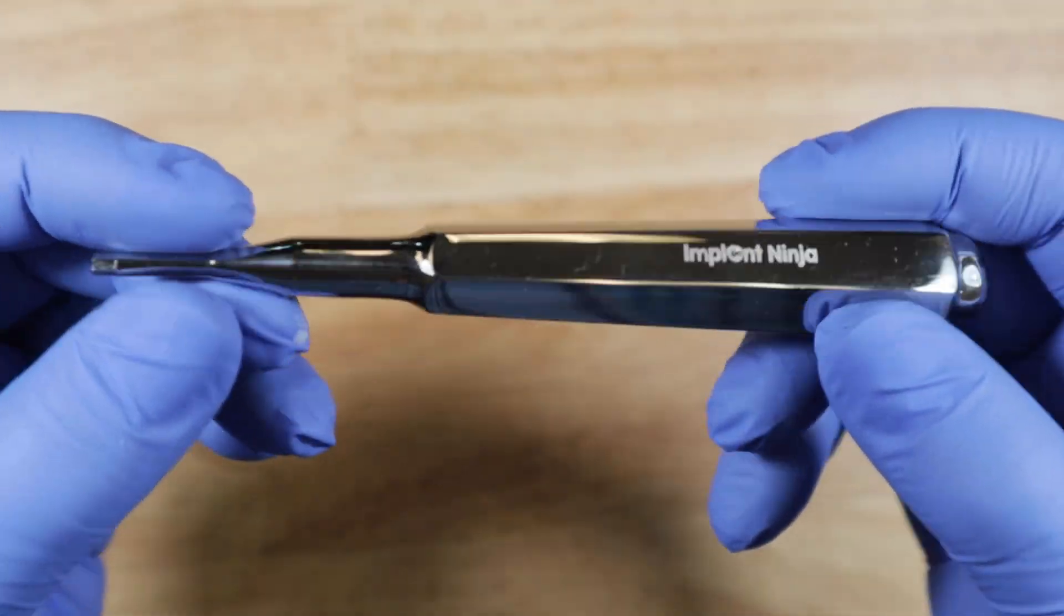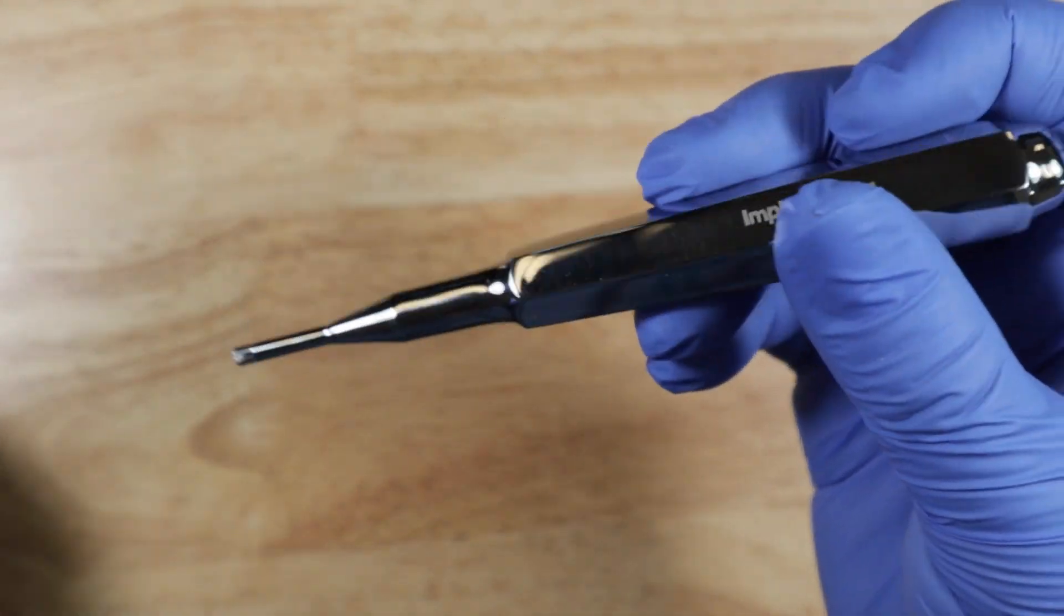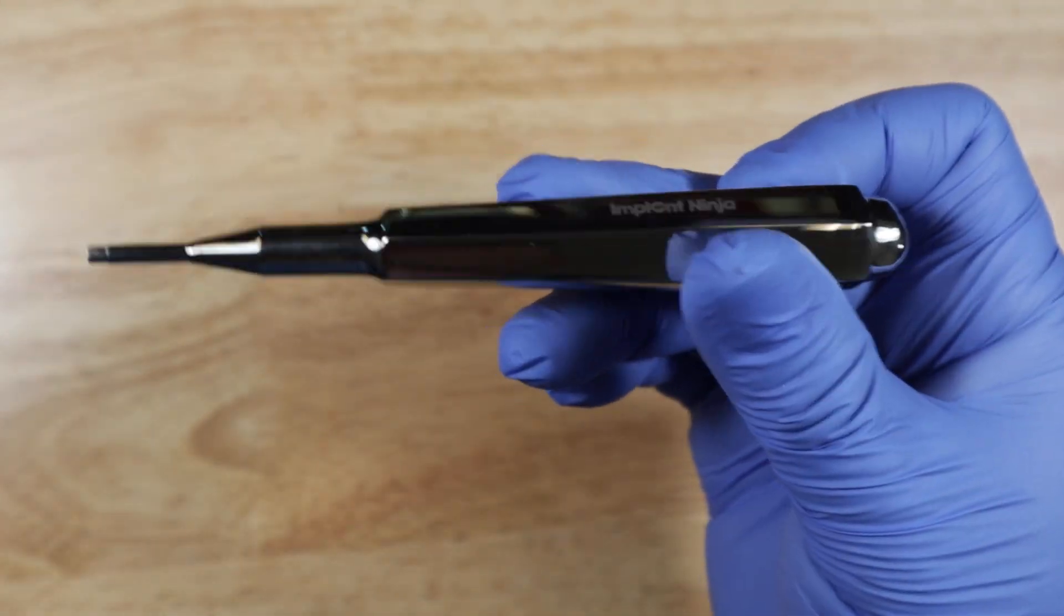The trusty hand driver. This little guy helps you to have a lot more control when you're placing maxillary anterior implants. Let me show you how it works.